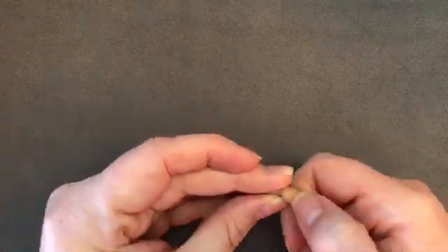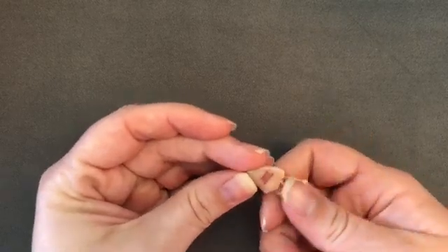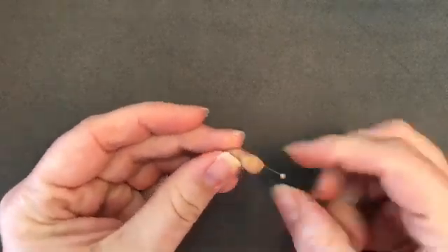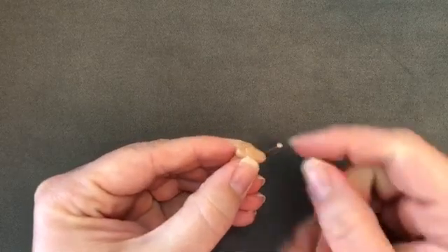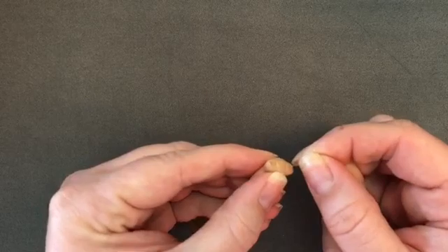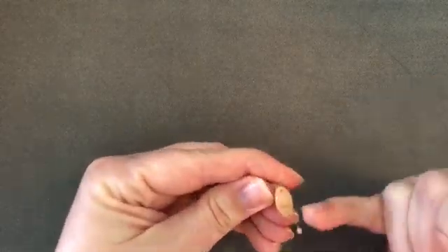These tend to use the smallest size batteries. Because the CIC is recessed so far into the ear canal, there's typically a pull string, pull cord, or removal line attached to the hearing aid to help the patient pull it out of their ear once they're done using it for the day.